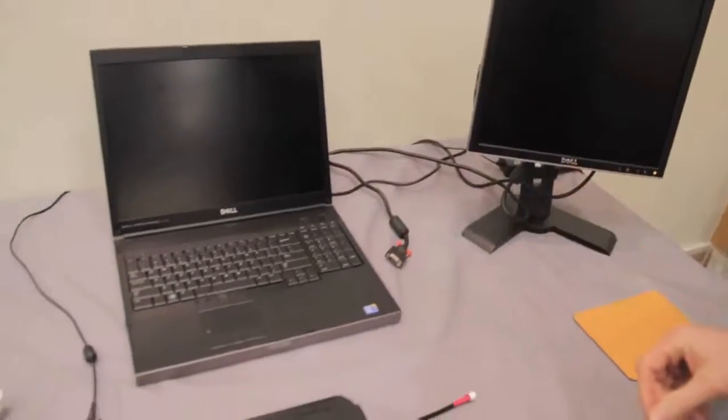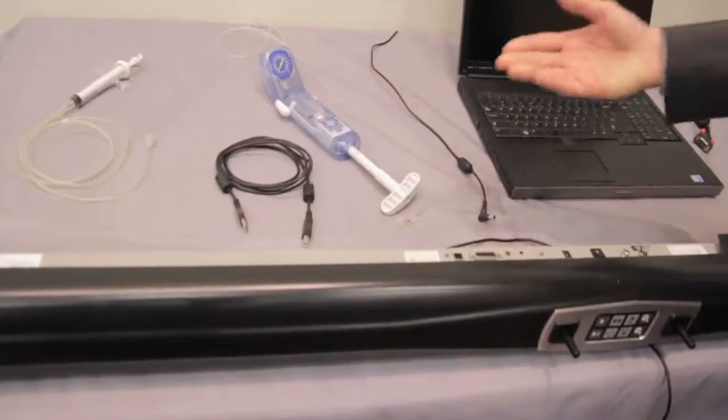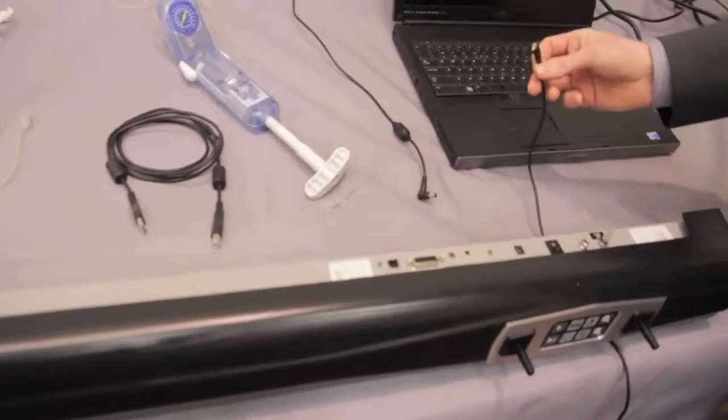We will go through the connection stages. We turn over the haptic device to its side and we'll start connecting the certain cables.